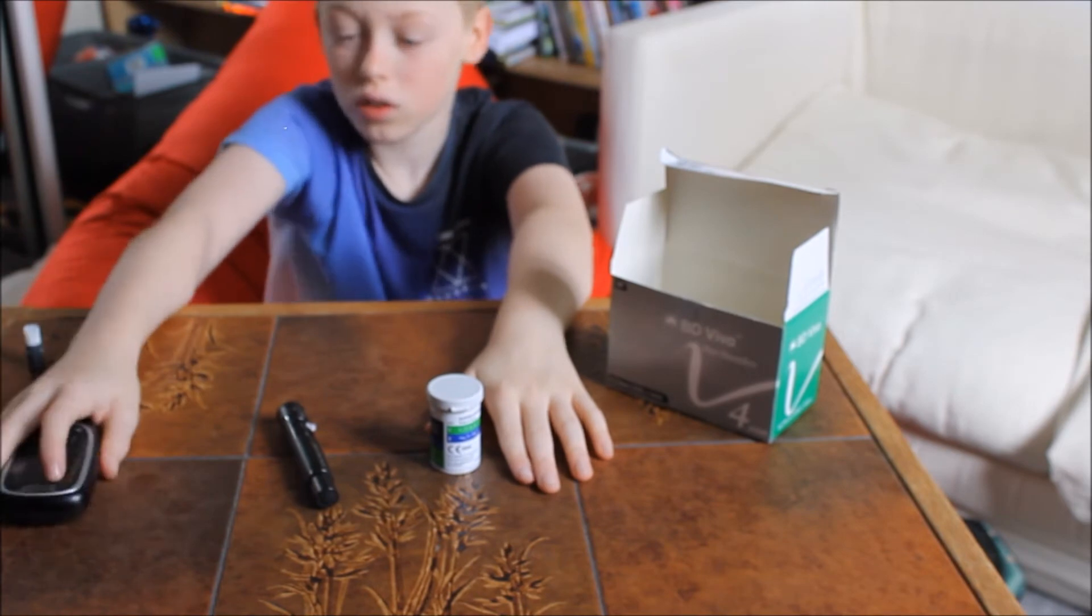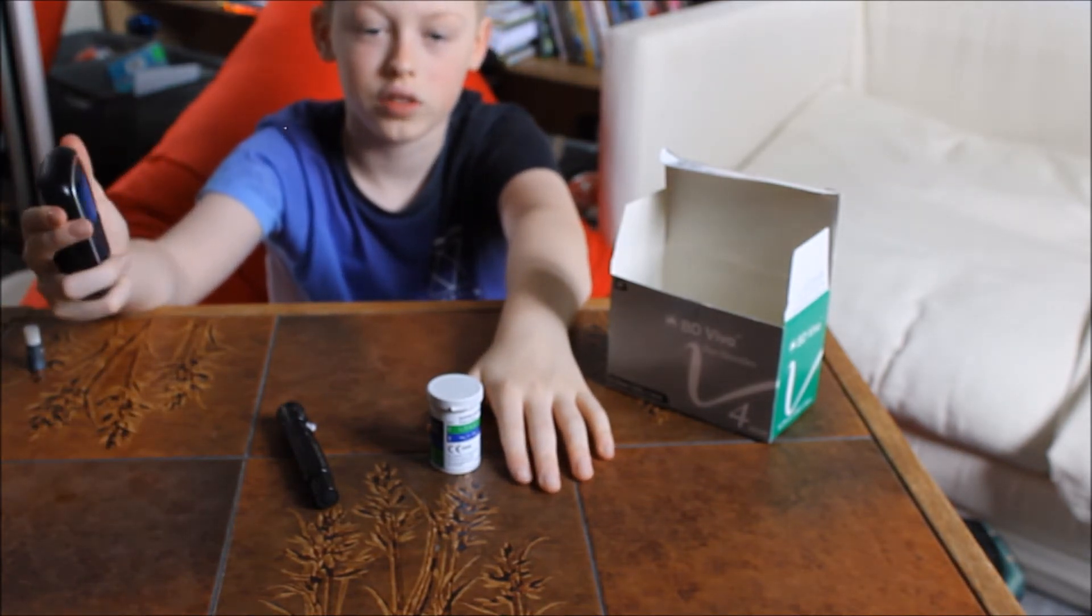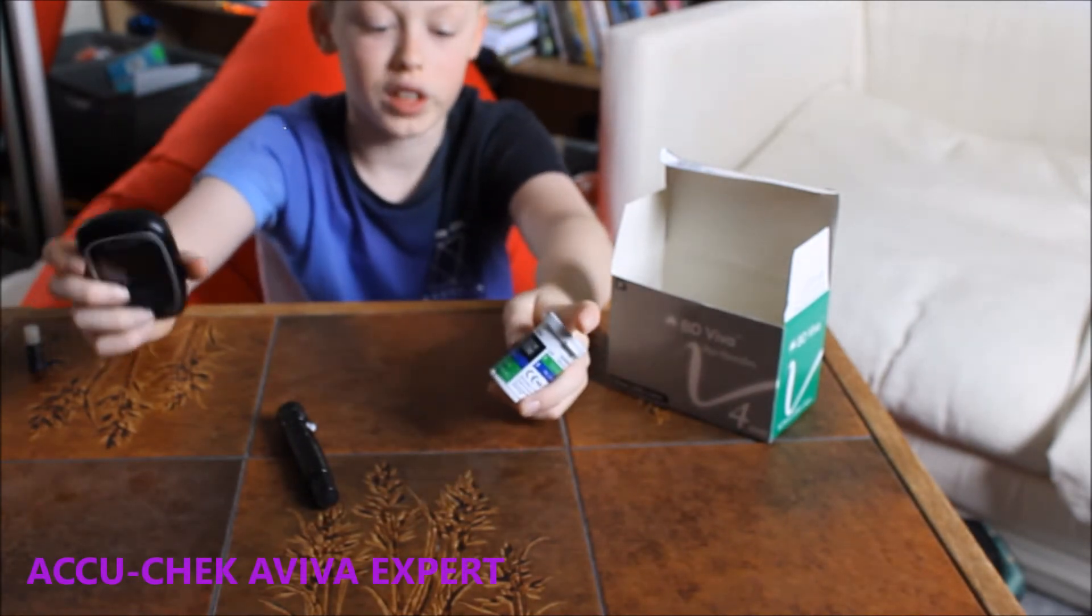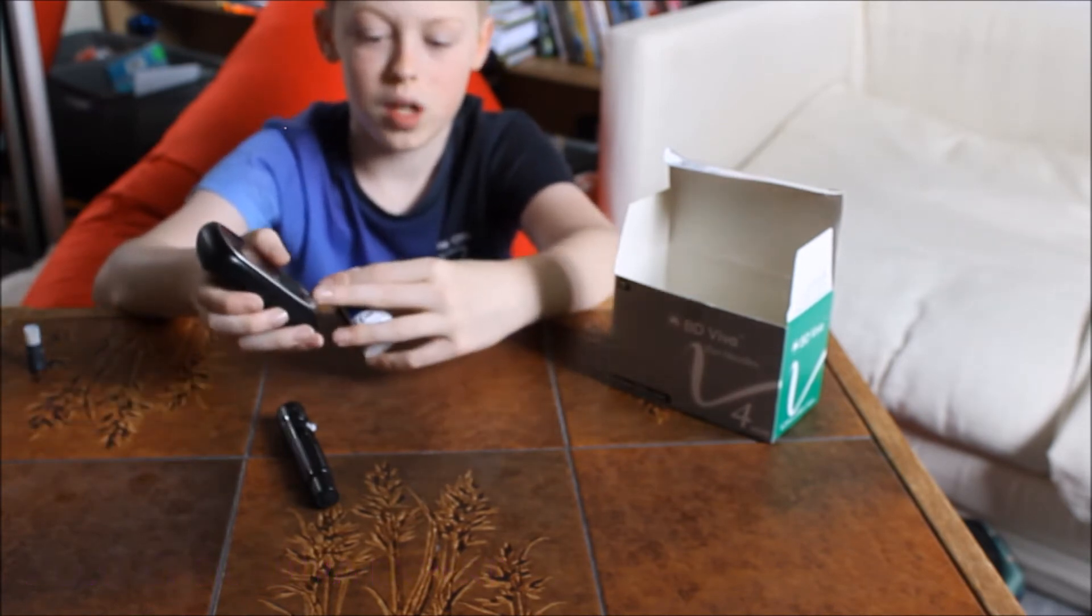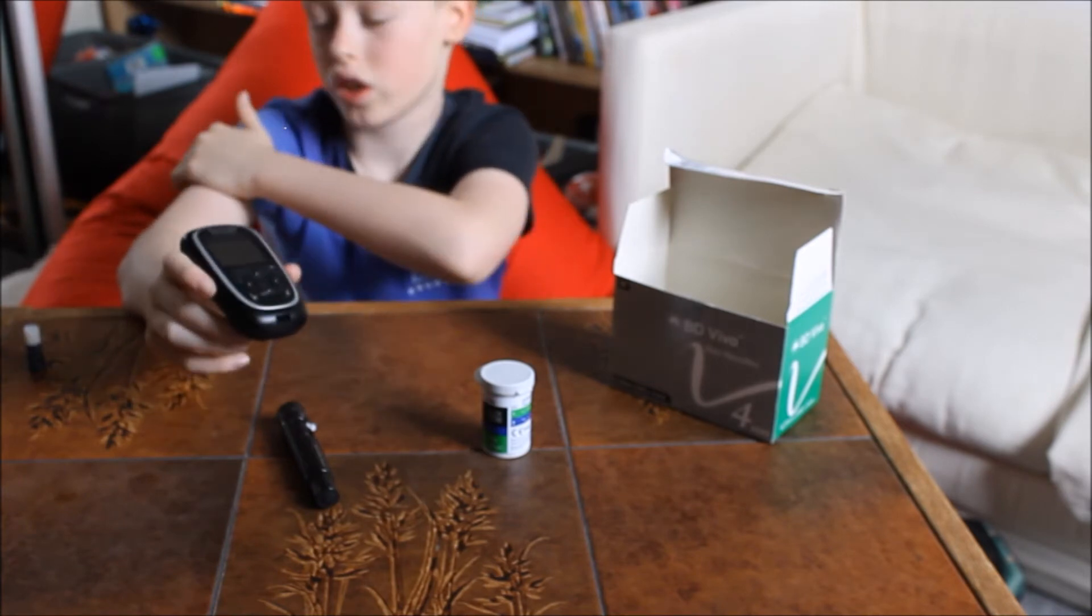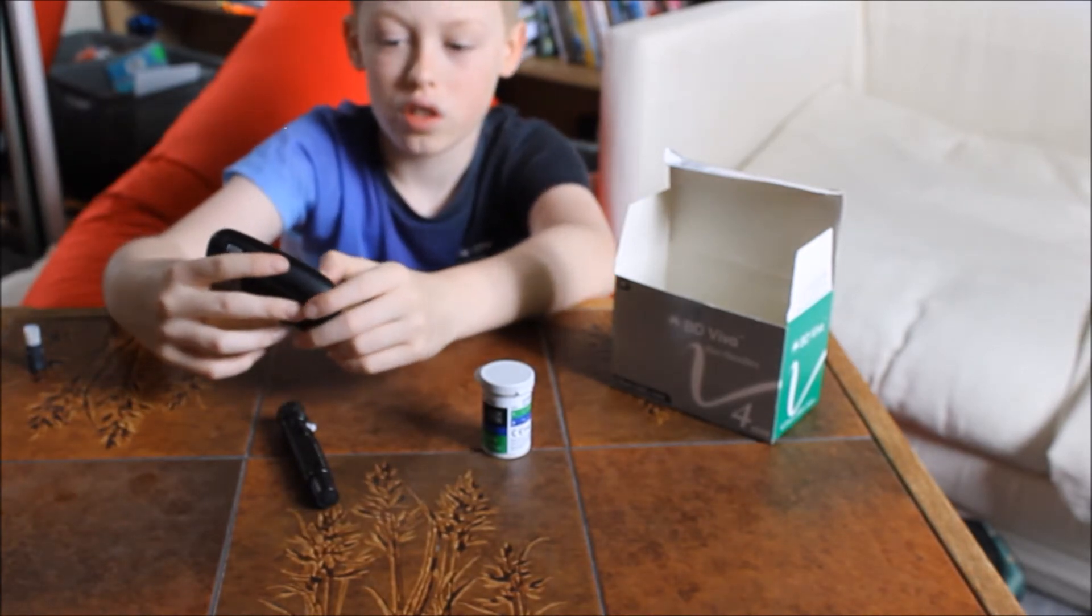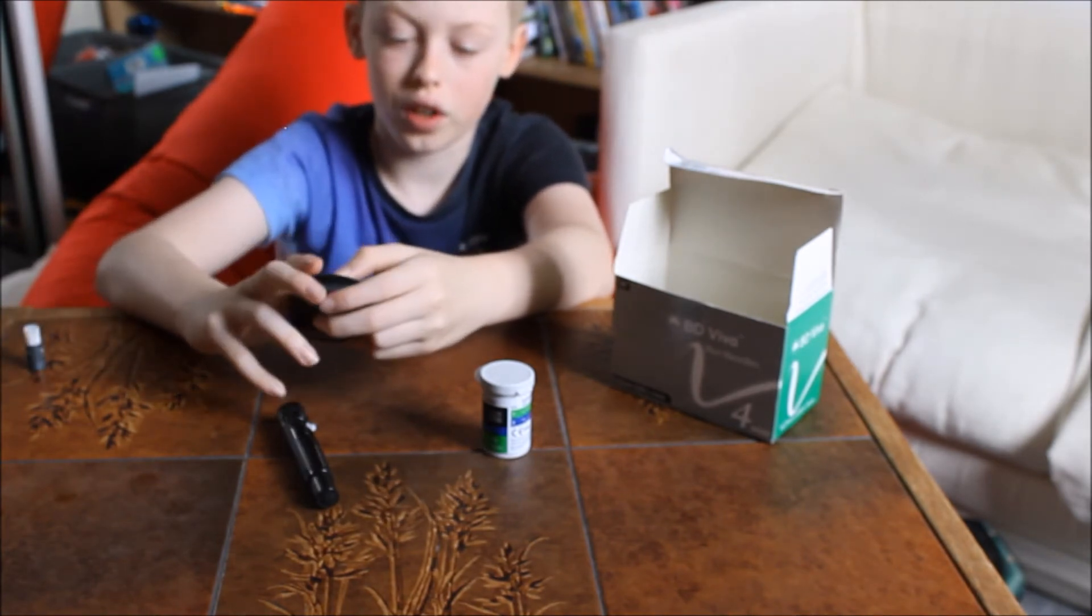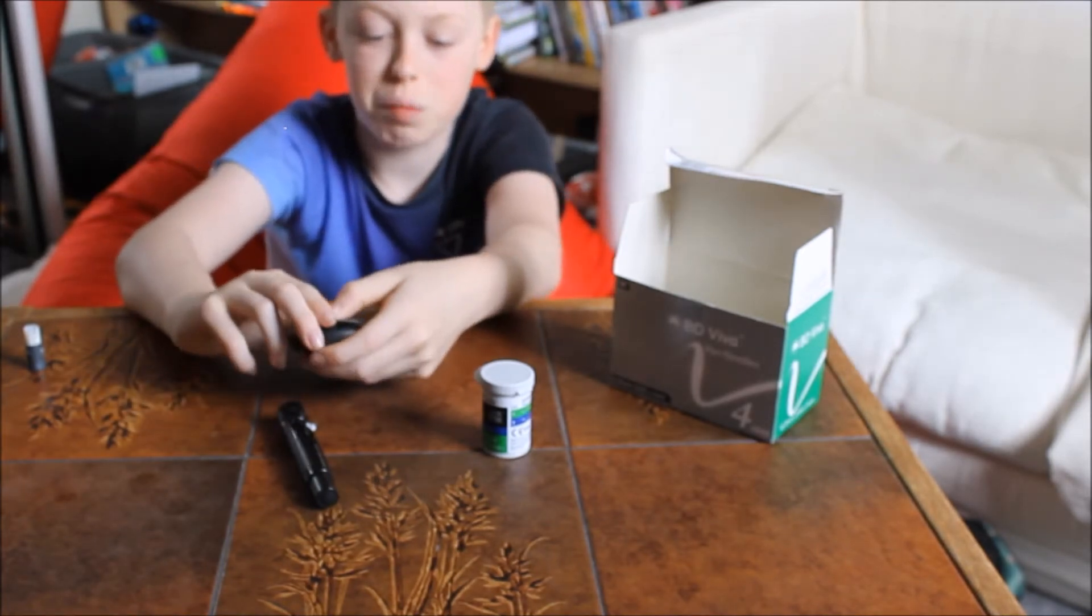Next thing, onto this. This is an Expert meter. An Expert meter works like, the first one you get this. It's the second. You just put the test strip in. Or if you have a Libre, which I'll be covering in a minute, you use the Libre. If it says you're in range, then you can use bolus advice.